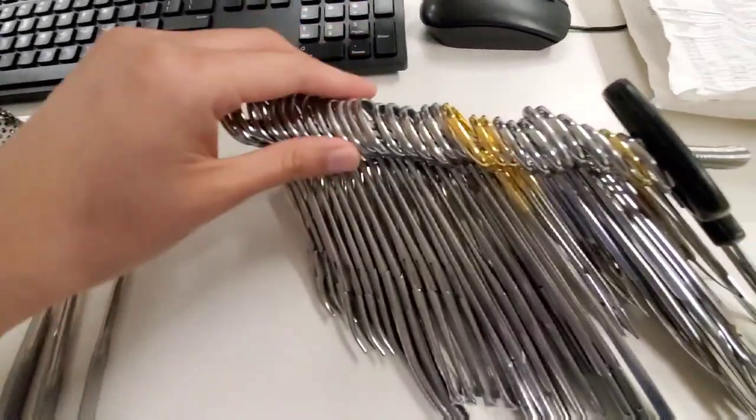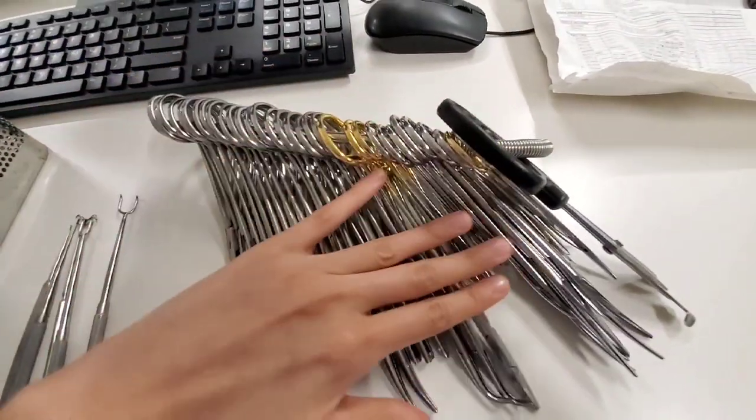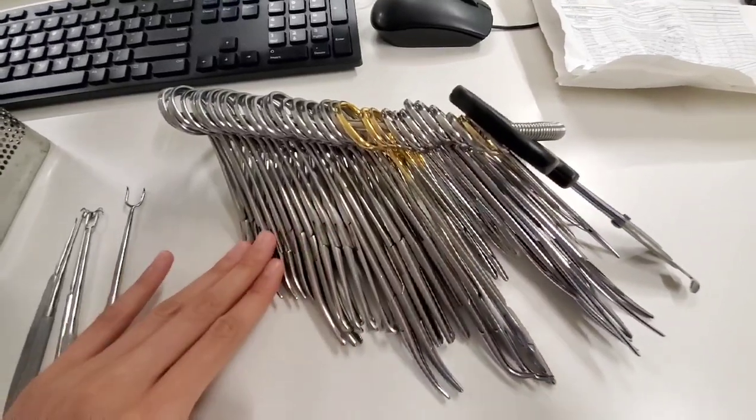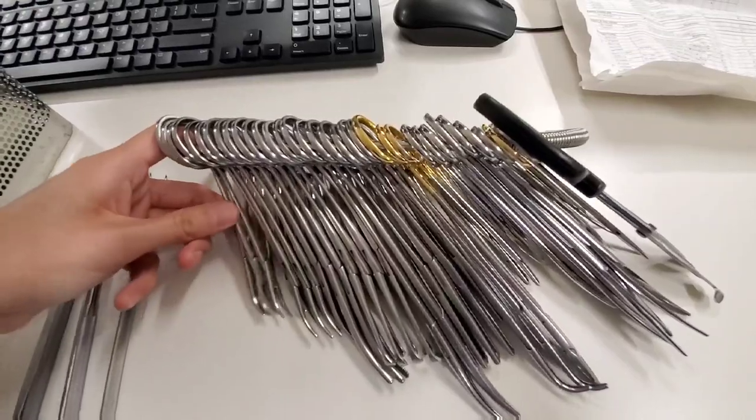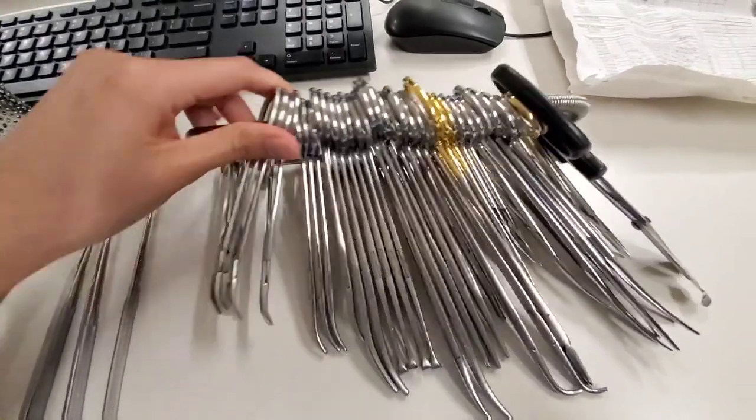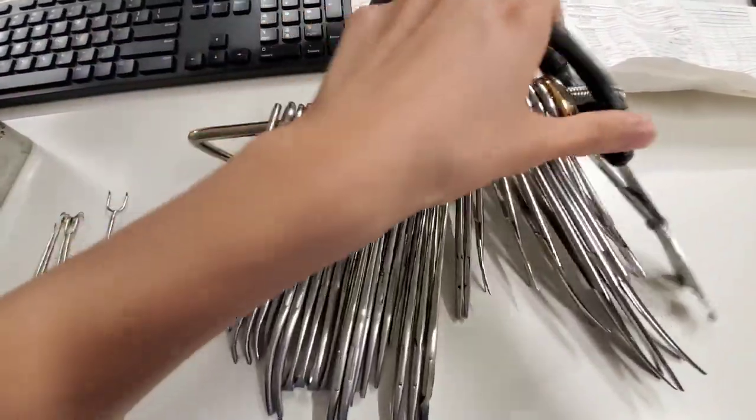Okay, let's go over the stringer. This is what it looks like — obviously it's not sterile, but I wanted to show you guys what the plastic tray looks like. I'm just gonna go over it quickly.